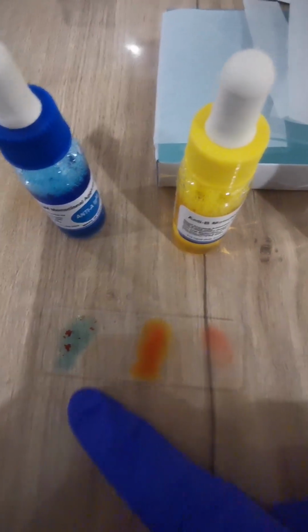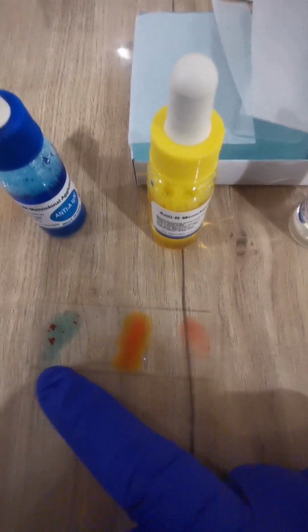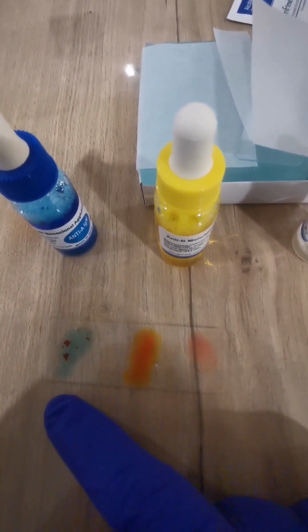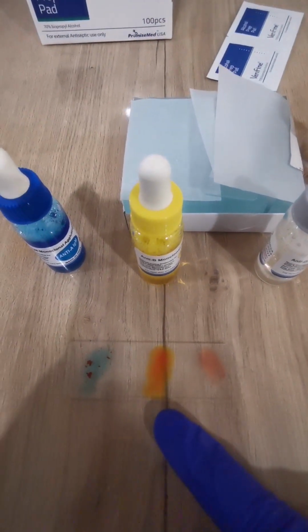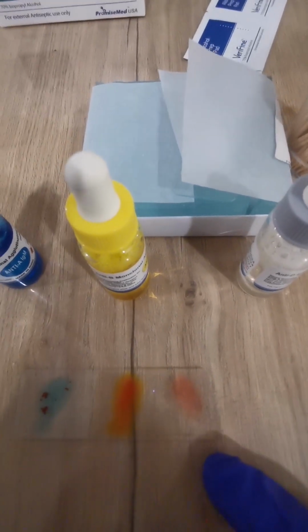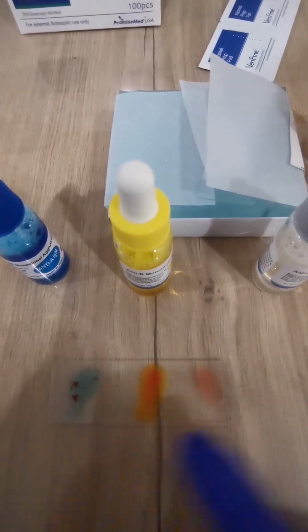If you look at these slides, you can see in which one agglutination, or clumping of the blood, happened. It's only here, where we added anti-A antibody. So my blood group is A, because I have A antigen on my blood, and this A antigen reacts with the anti-A antibody and agglutination happens. What about B? I don't have B. Is it positive or negative? Because there is no clumping or agglutination here, we can say A negative.